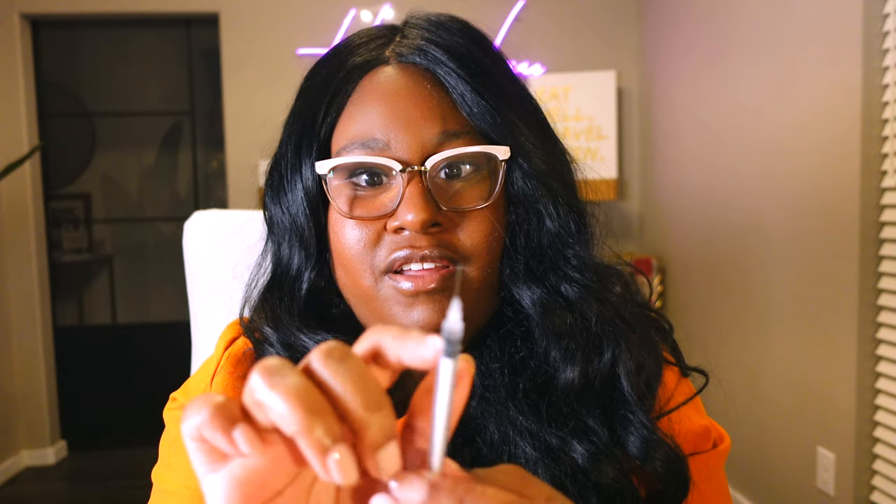And then this is a longer needle than I'm used to, but I can still certainly take it using this syringe. This is like the same kind of syringe you might use when you're using a vial instead of a pen. So this pen is spent totally — there's no more insulin in here. So we'll do a second one.